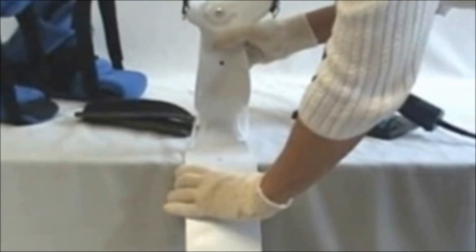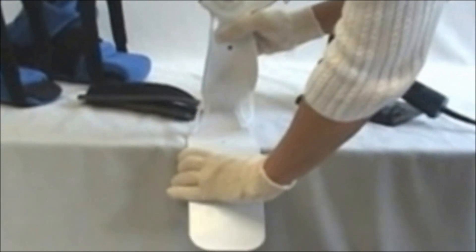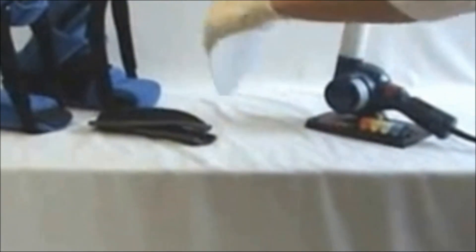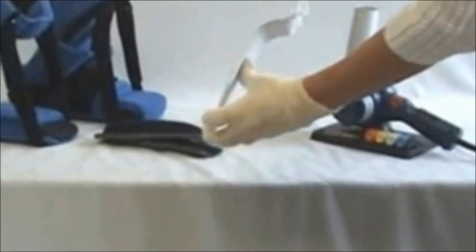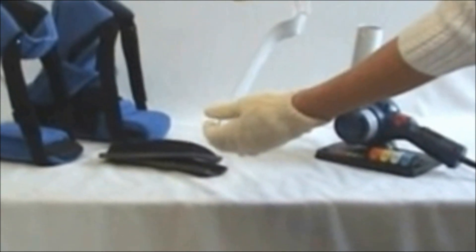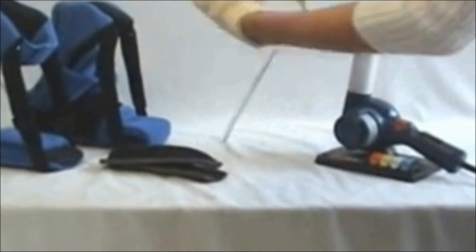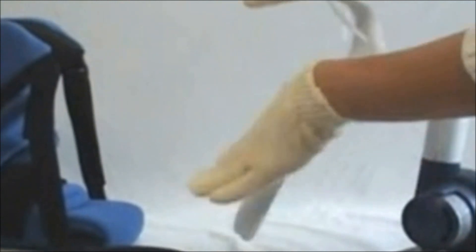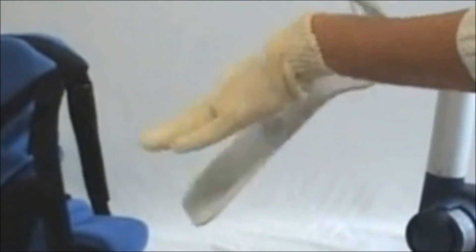Hold the boot straight up and down and just bend it nicely. You can do it over a side rail, a table top. You don't want a sharp corner there, a point, a nice curve. Kind of push up on the toes if you want to help make that angle. But make it match the deformity of the patient's foot. You'll see it's flexible.